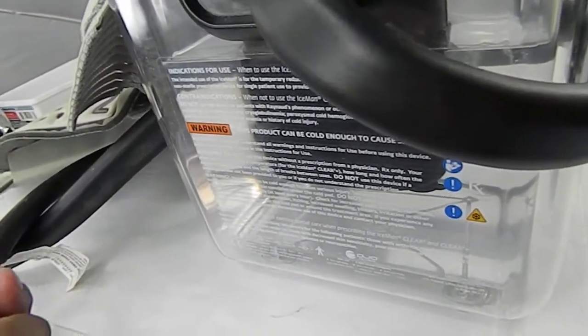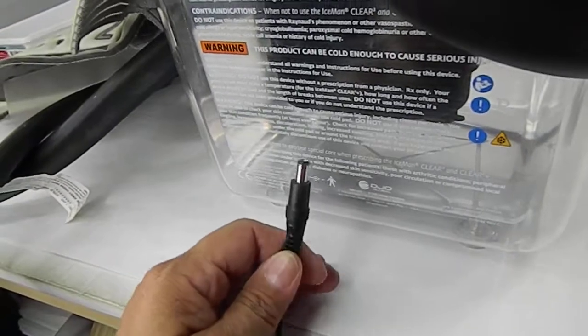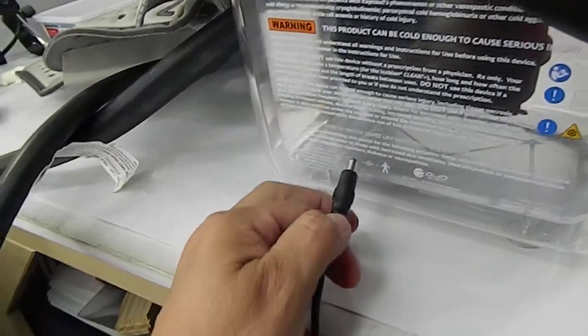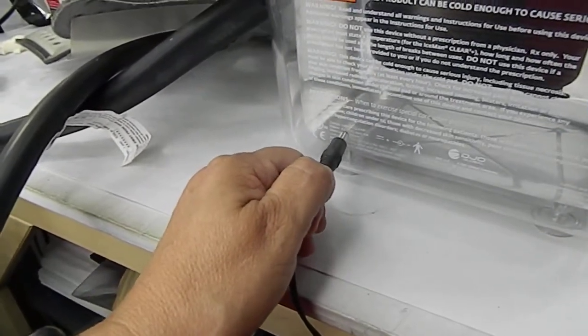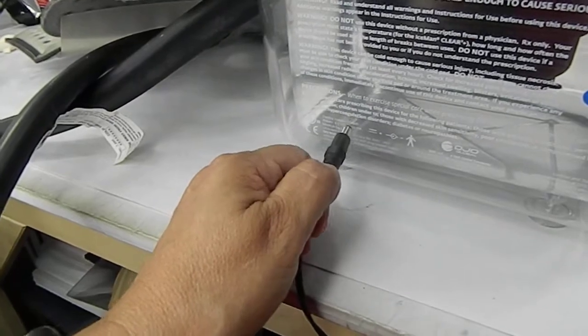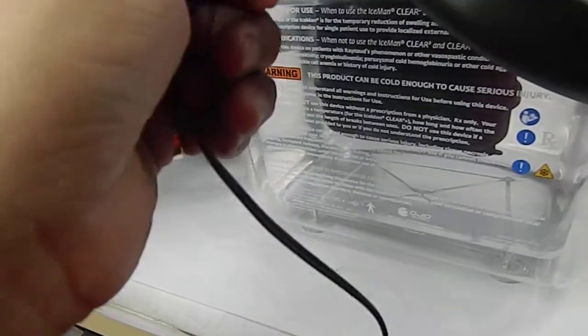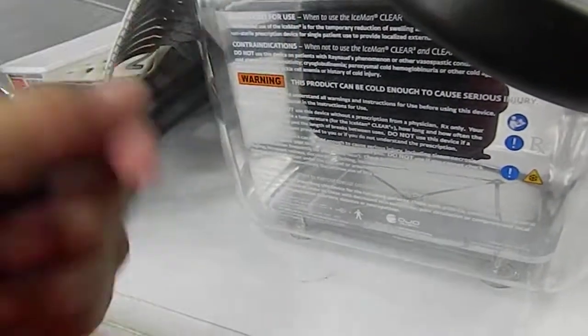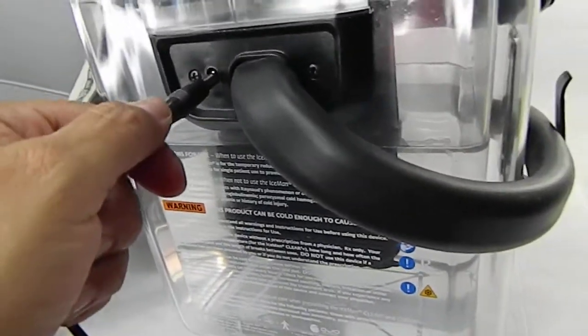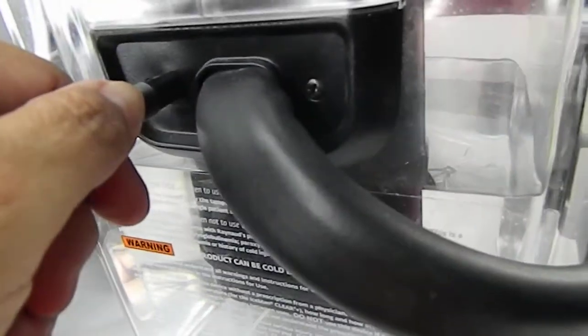This is a replacement adapter, by the way. It says 8.5 volt DC, and I found a 9 volt that plugs in and fits it, but again it's not pumping. So you can hear it.